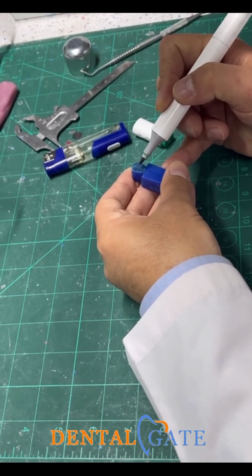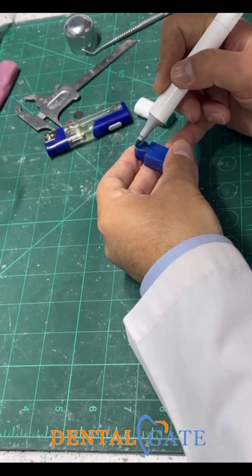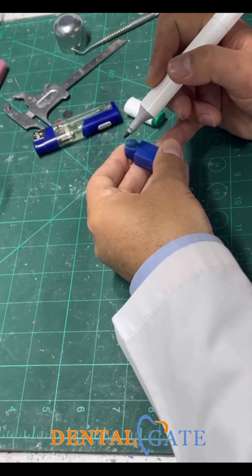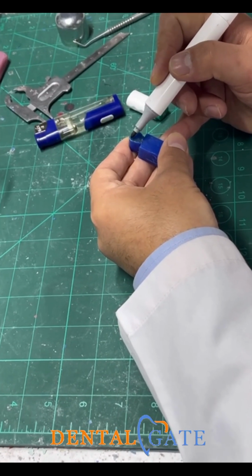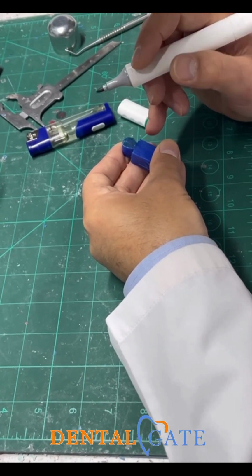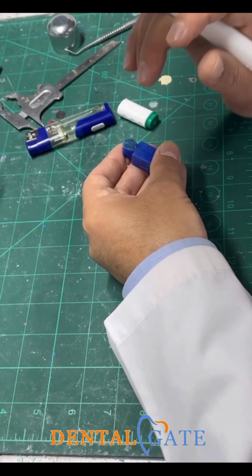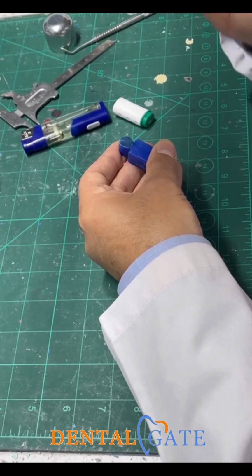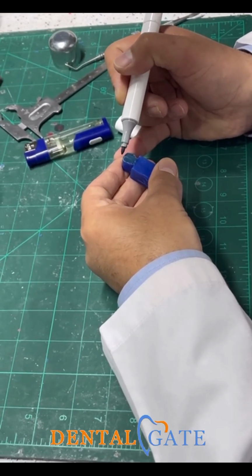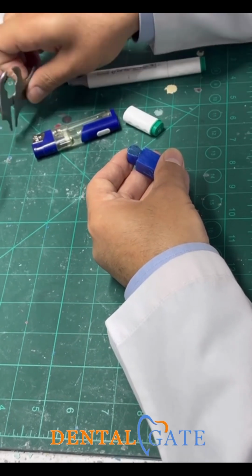On the other side, we have 3 millimeters at the incisal third, but toward the cervical. It's not at the junction between the middle and the incisal third, just toward the junction, okay? Because we are still in the anterior teeth. The anterior teeth contact area will still be in the incisal third, but in the central incisor it is toward the incisal edge. In the lateral, it will be decreased, okay? So this is 3 millimeters.